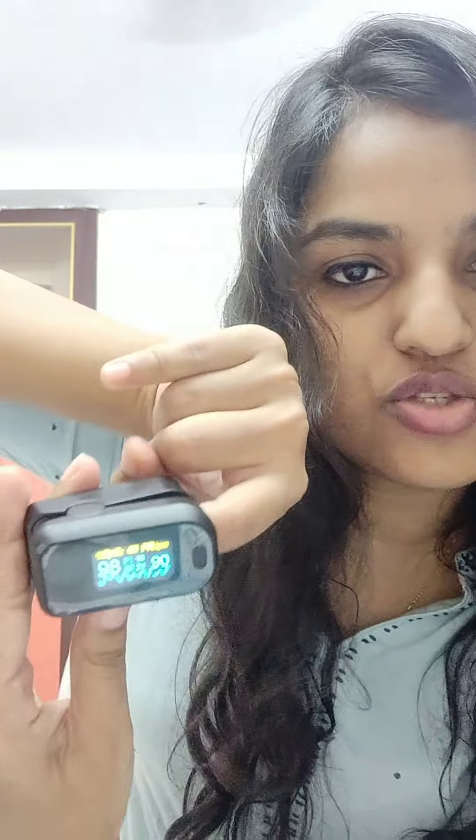Hello everyone, my name is Dr. Saluni Sinha. I have shared the Chinese pulse oximeter review with you in the past video. I also ordered a more authentic pulse oximeter online, but since it was two days ago and my COVID-19 reports were positive, my parents bought this one from a shop. Similarly, you put your finger inside, switch it on, and keep it for around 10 seconds. You can see it is showing my oxygen saturation to be 99 and pulse to be 91.